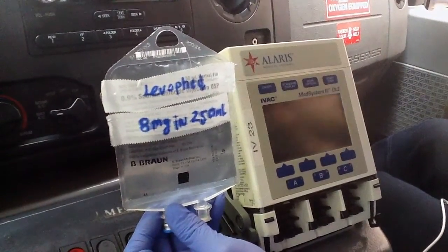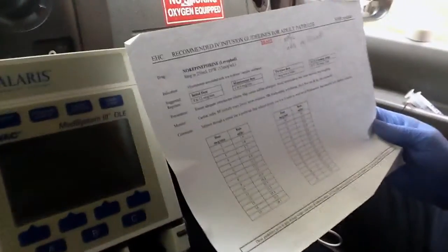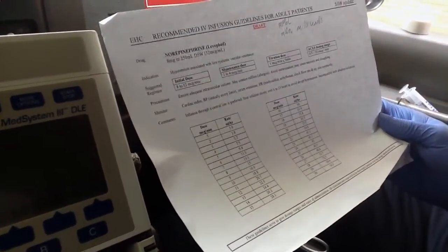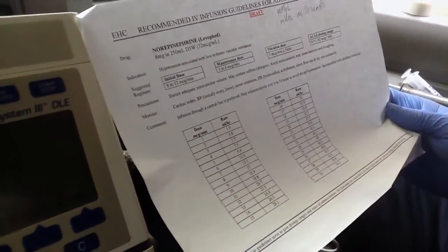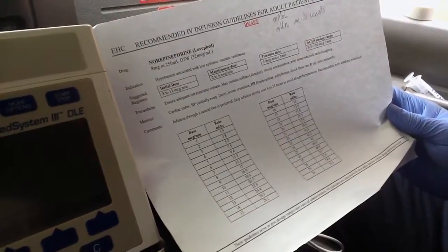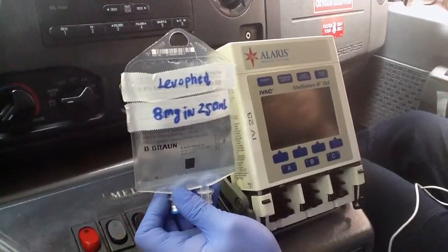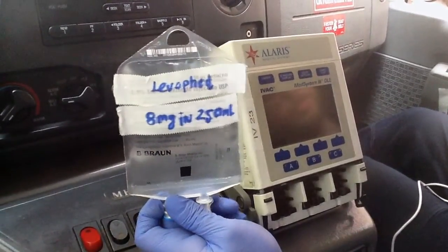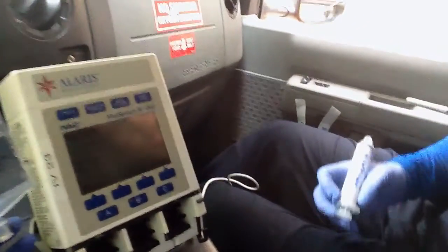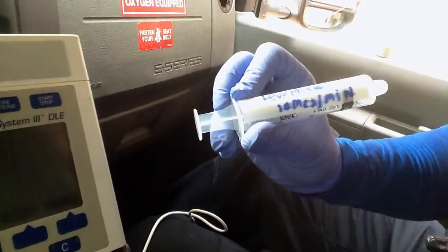Pretend it's a brand new 250 mL bag. We have levophed 8 milligrams in 250, and here I have a drip sheet for levophed — pre-calculated correct ranges. We're going to start with an initial dose of 10 micrograms a minute, and the sheet says our mLs per hour should be 18.8. Since this is a critical medicine, you cannot disconnect the patient for a prolonged period, so while it's still infusing you take a syringe — 20 to 60 cc — and label it levophed with the concentration.